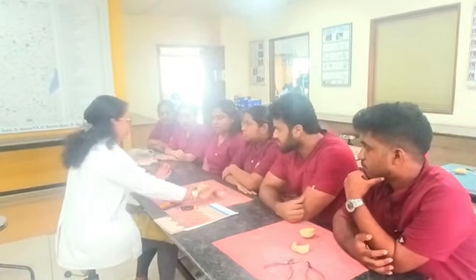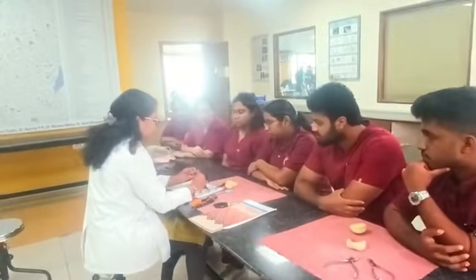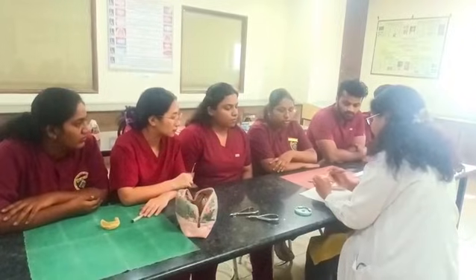And what's the first step? You are going to make one 90-degree bend. Okay, an L-shaped bend is given. So you are going to see the cast. You have to mark what is the width that is required. Use a marker. Then mark the length of the bridge. What is the length? Yes, 2/3 of your mesiodistal width. You are going to mark it.